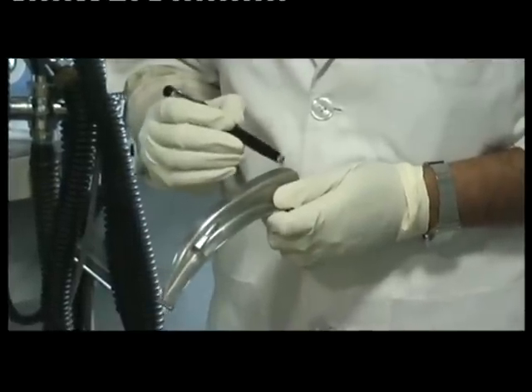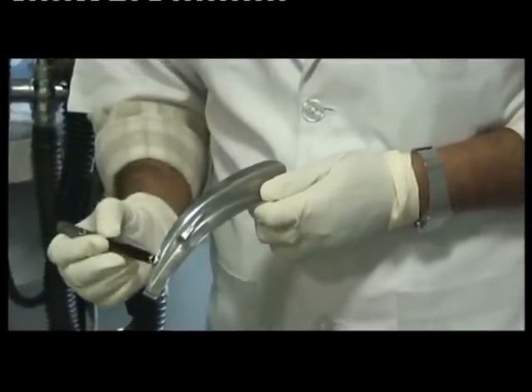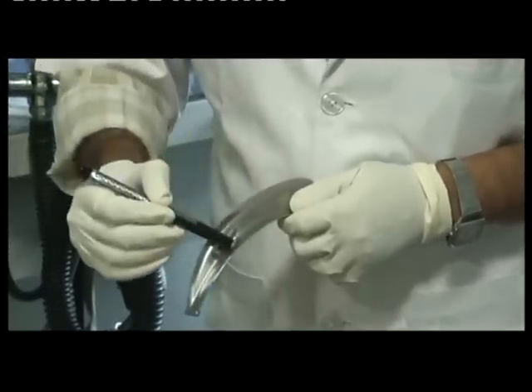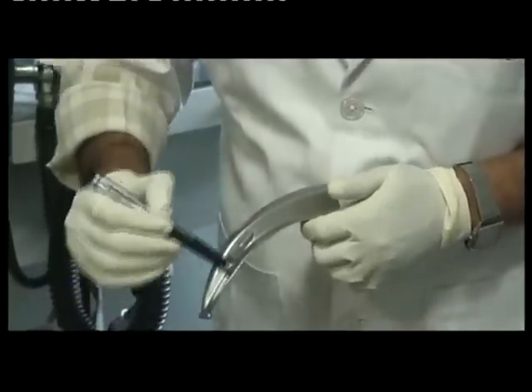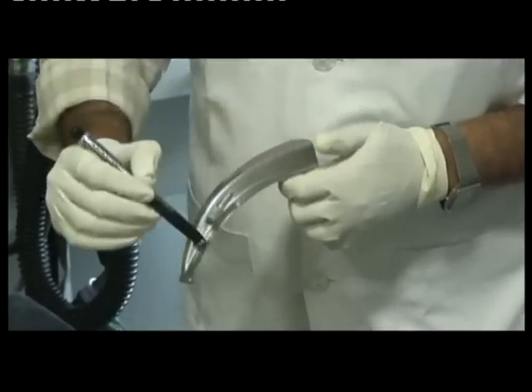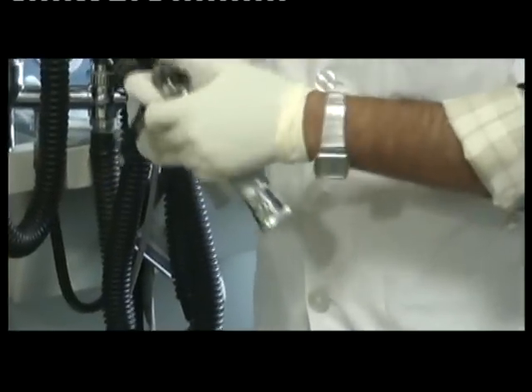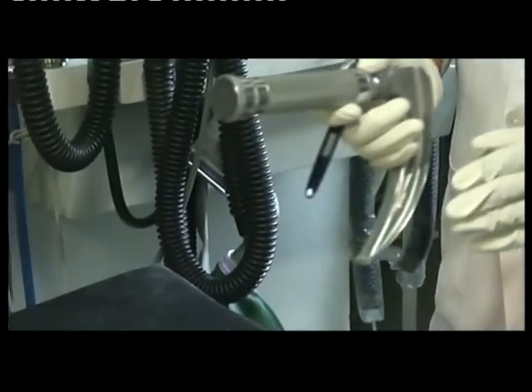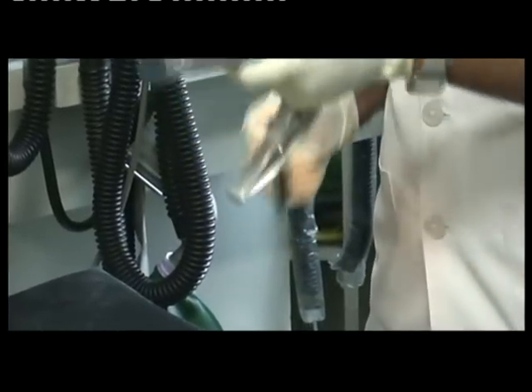The second part of the blade is known as the flange. This flange is attached to the tongue with the help of a portion known as the web. This flange helps to shift the soft tissues, especially the tongue, towards one side and out of the line of vision.